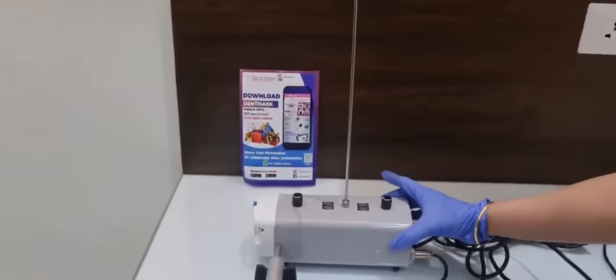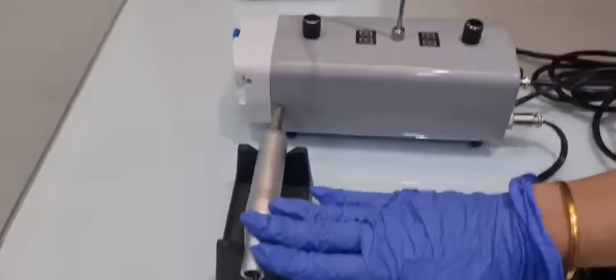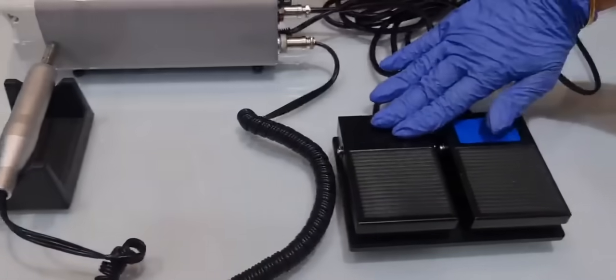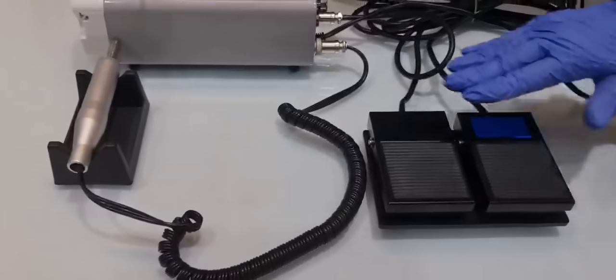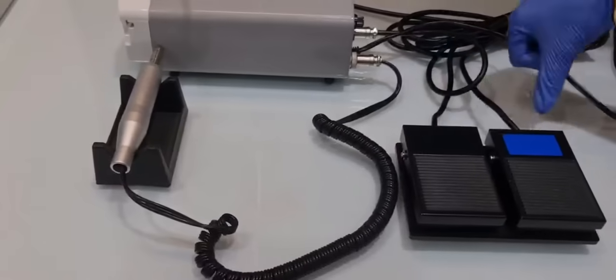This is the control unit, this is the motor, and this is the foot control. As you can see there are two foot controls.